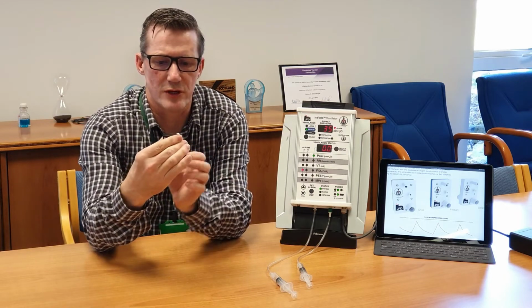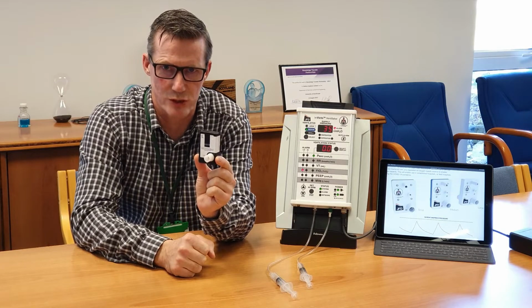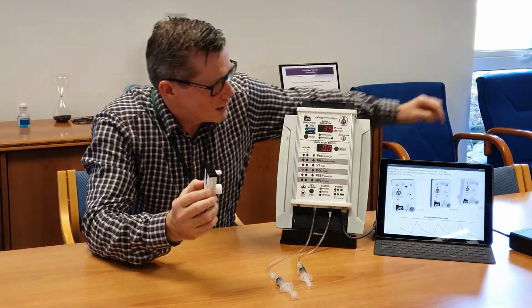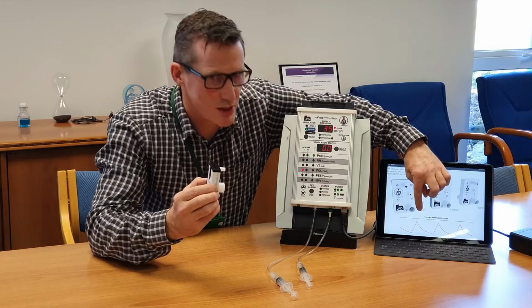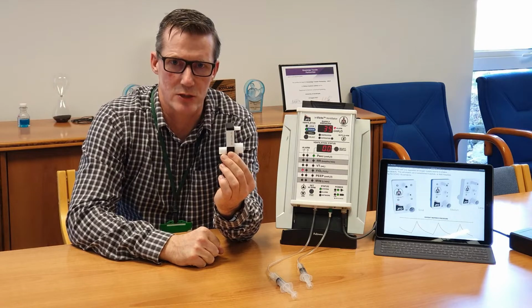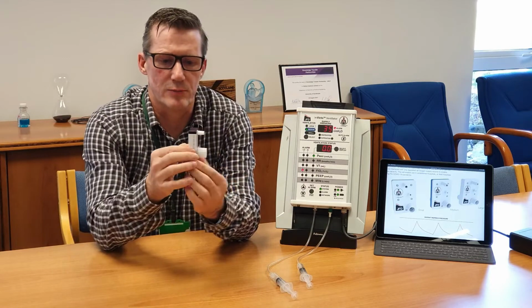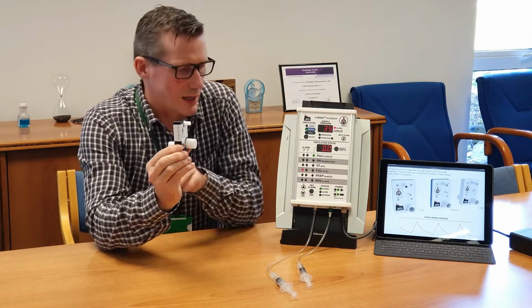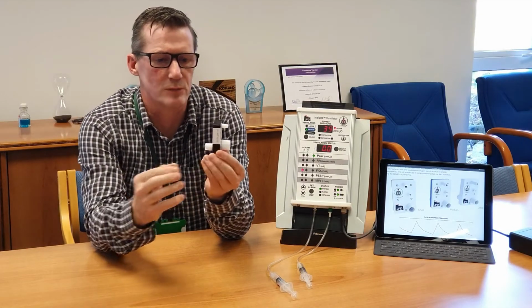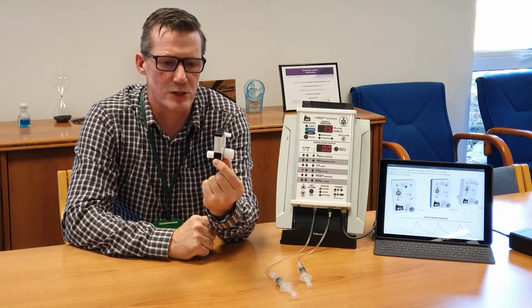And what this device does is it provides more than CPAP support, so it's not just simply providing positive pressure, it actually tracks the breathing of the patient so that when the patient breathes in, as shown in a breathing cycle here, the inspiration cycle, the ventilator will provide the gas to the patient, which is a mixture of air and oxygen, with fractional oxygen percentages up to 80%. And the patient, when they expire, they breathe out and the breathing cycle comes down like a conventional expiry breathing cycle.